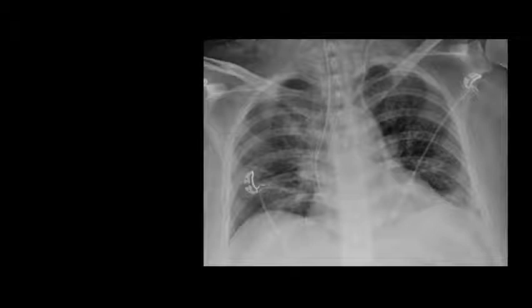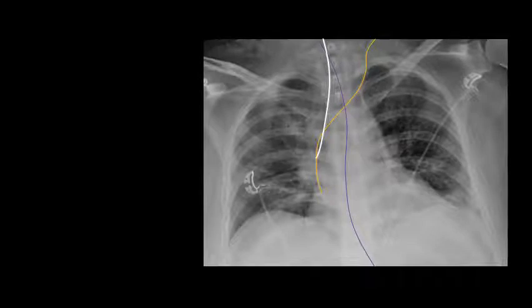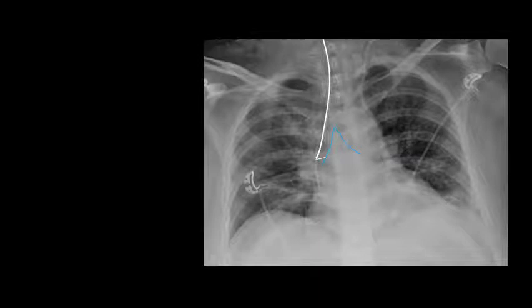Now take a look at this example and decide where you think the endotracheal tube terminates. We see the endotracheal tube delineated by a thick white line, distinguishing it from the enteric tube and the internal jugular central venous catheter. In this case, the thick white line is directed down into the right main stem bronchus, going beyond the carina — and is therefore improperly positioned.